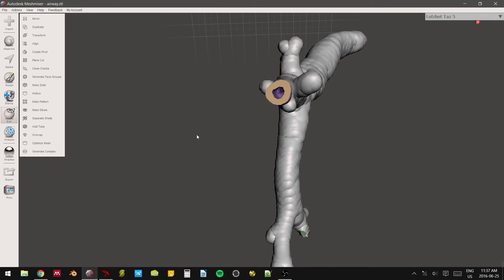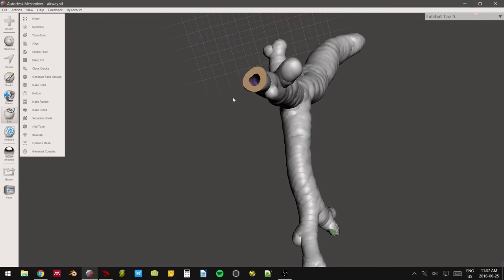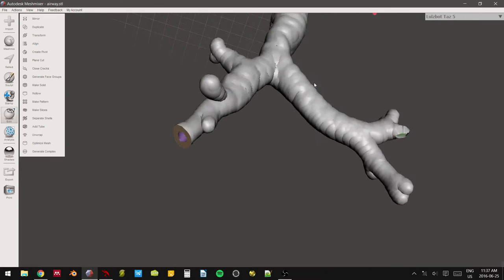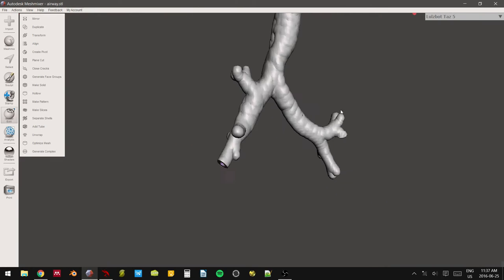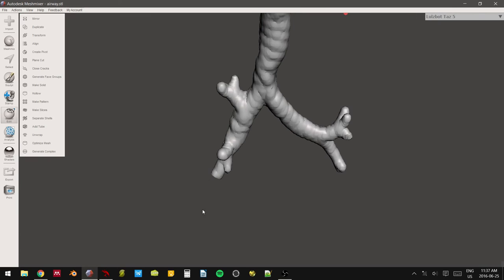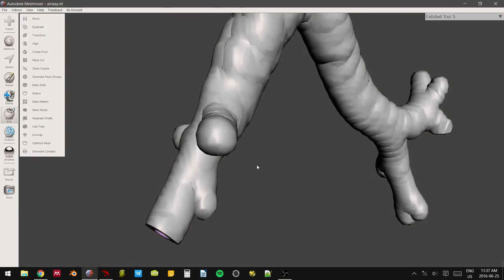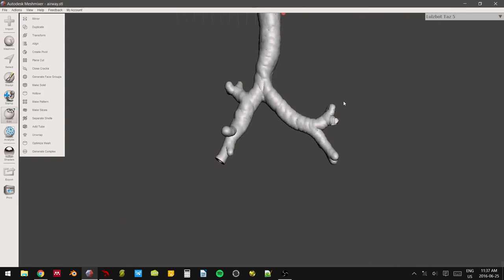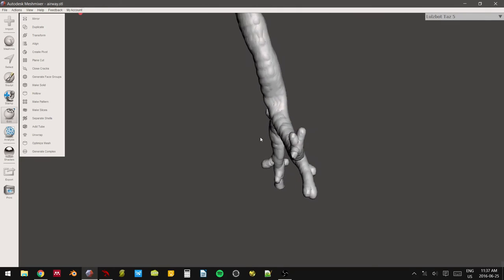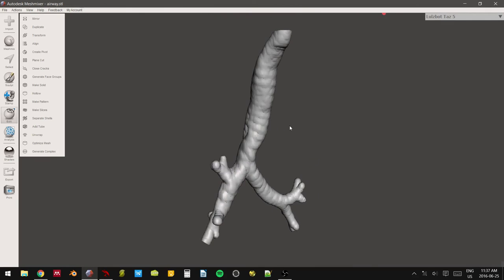Sometimes I just put these in like that. And then if you have the ends open, you can design some markers in other 3D software. And then you can put the markers in. And the markers can be used as like a teaching guide. So that when you see that color up in here, you know that you're at the right lower bronchus. And I'm just going to leave that in.